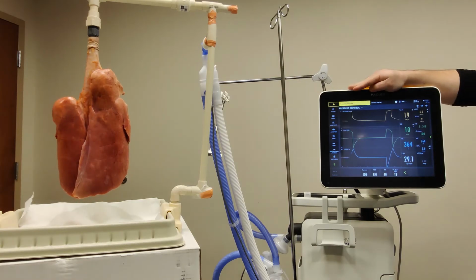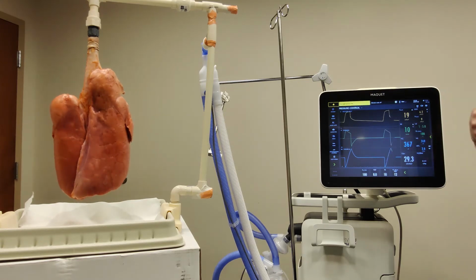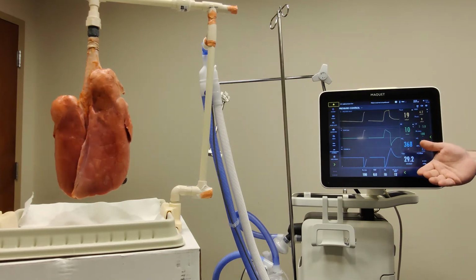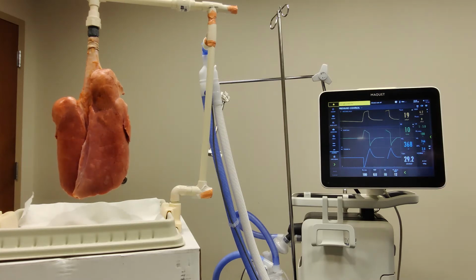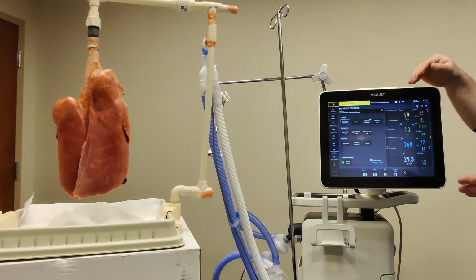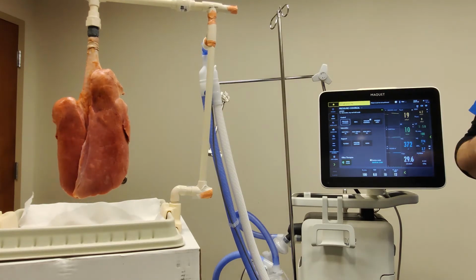Now, when we're talking about pressure control, and we're looking at ventilation versus oxygenation, again, respiratory rate will be used for ventilation, and also the pressure control. Depending on how much pressure you give will determine how much volume you're getting from the patient, and that'll help your ventilation. But likewise, as with the volume control mode, we'll look at FiO2 and PEEP for oxygenation purposes. Now, the next mode we're going to go into for pressure will be APRV, but we will come back to that. In the meantime, we're going to go over spontaneous breathing modes.